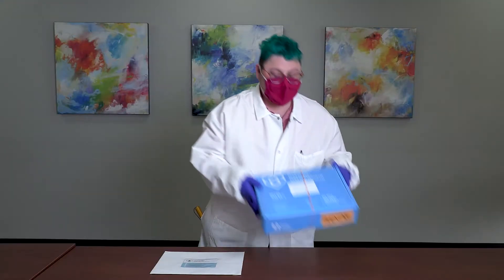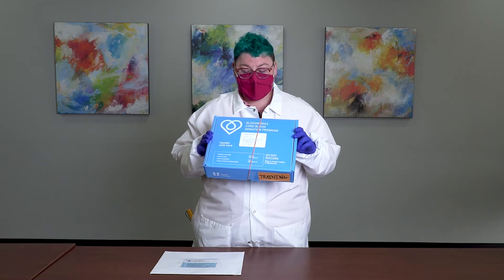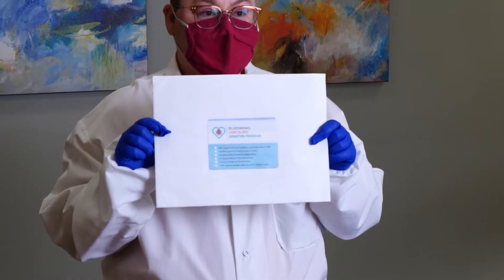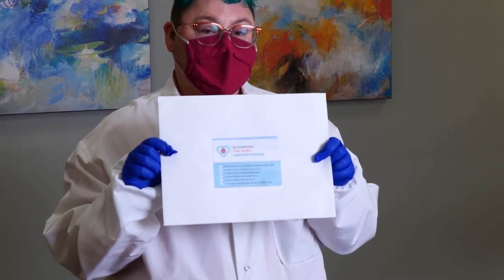First, I'm going to discuss the Cord Blood Collection Bag made by Fresenius Kabi. When you're ready to do your Cord Blood Collection, you'll need to collect two different items. The first is the Cord Blood Collection Kit, stored in the storage room in labor and delivery at all of our participating hospitals. While you're in the storage room, you'll also need to grab an Admit Packet.